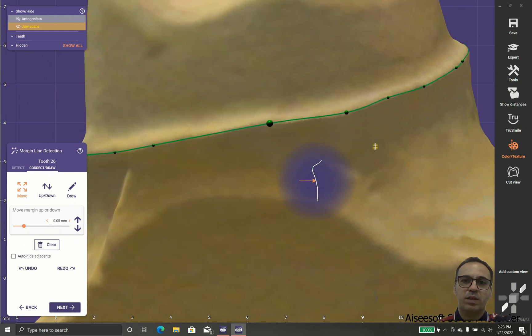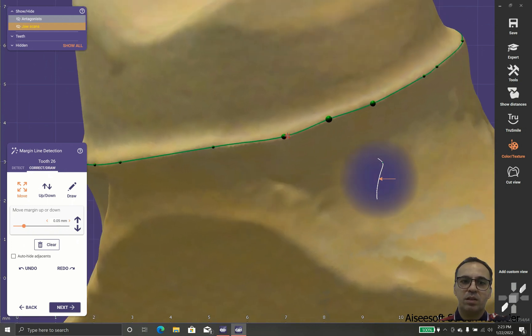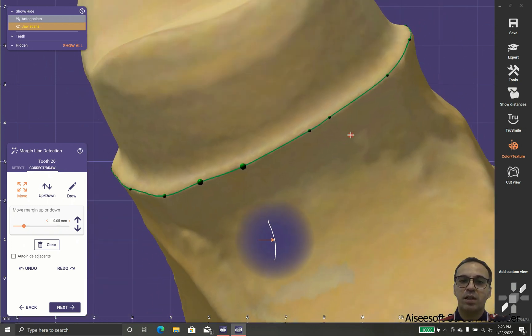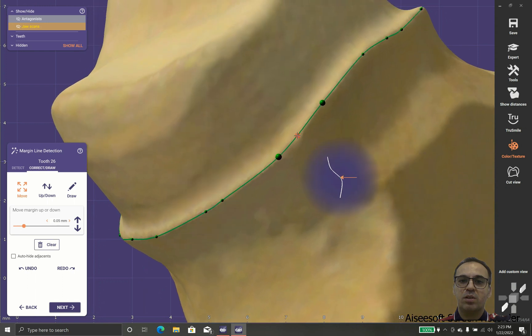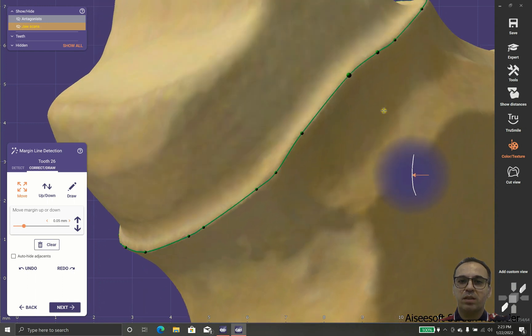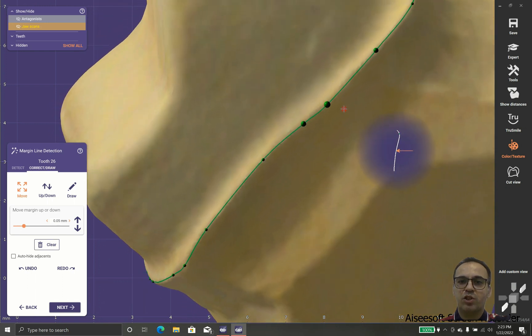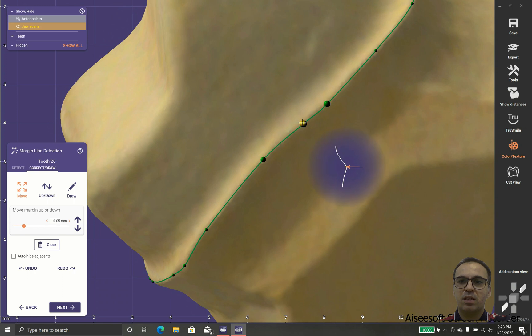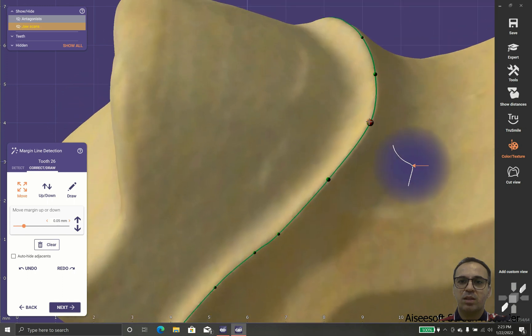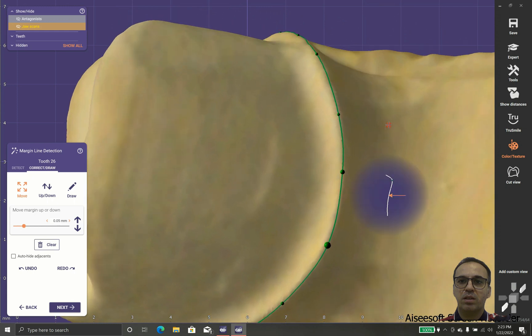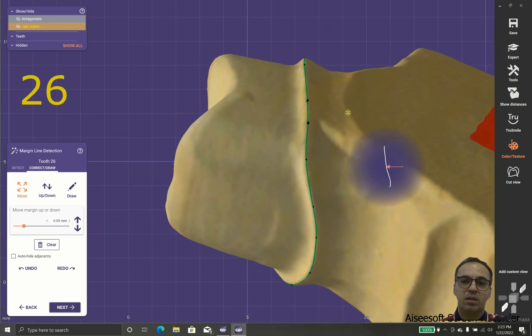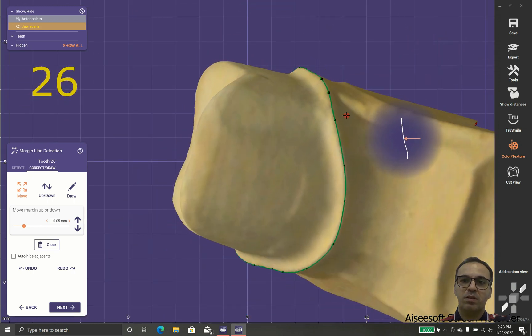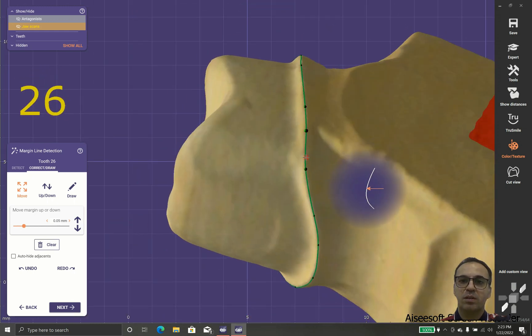And we can use adjust lights so we can do the meticulous adjust. As you can see, these adjustments make the job even more accurate.